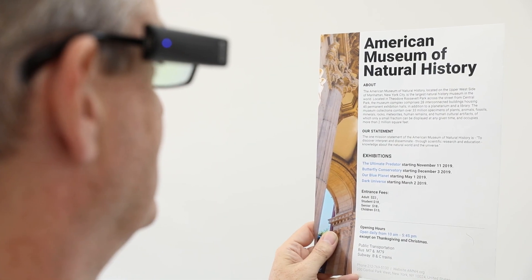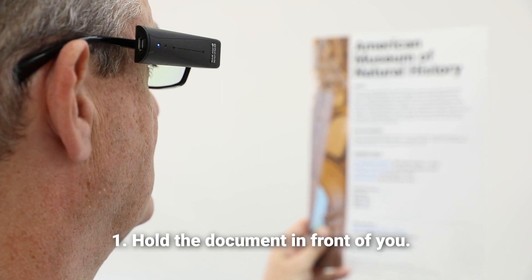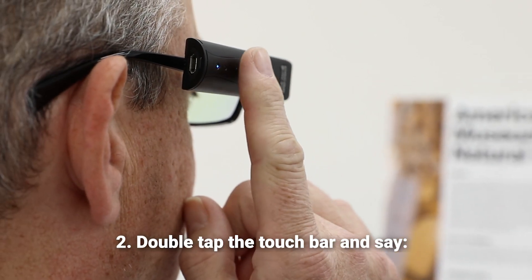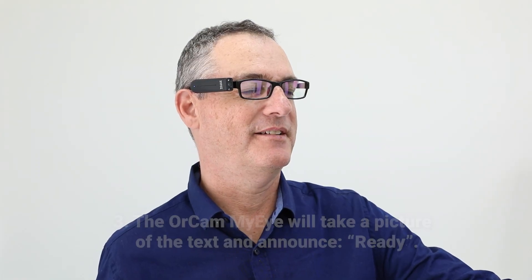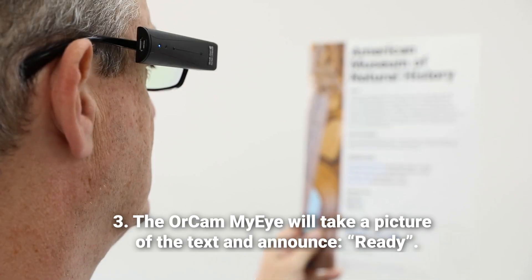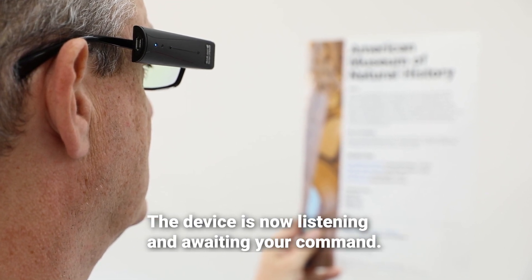It also finds headlines and articles by using vocal commands. Let's see two examples. Hold the document in front of you while the camera is directly facing the text. Double tap the touch bar and say, Smart Reading. The OrCam MyEye will take a picture of the text and announce Ready. The device is now listening and awaiting your command.